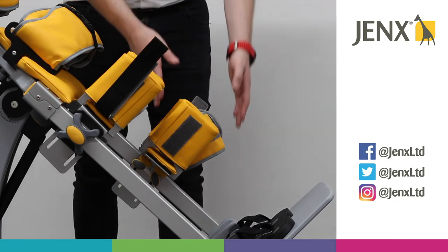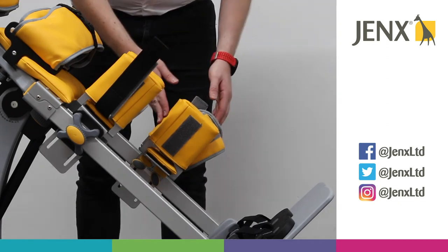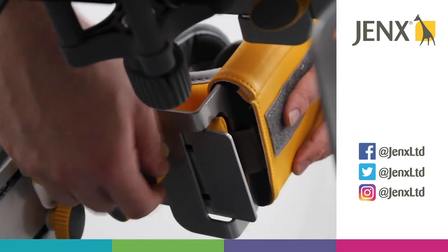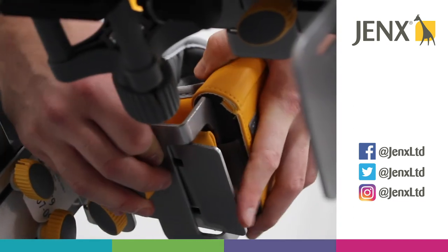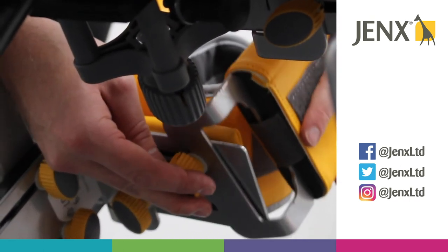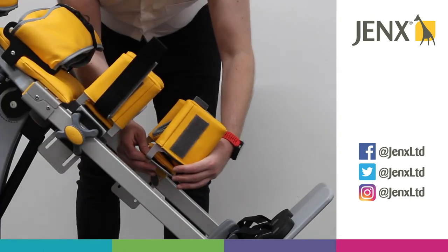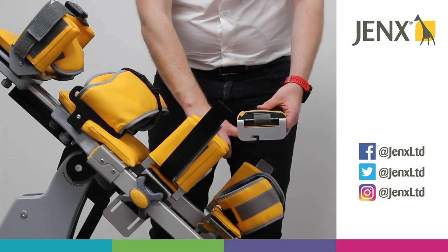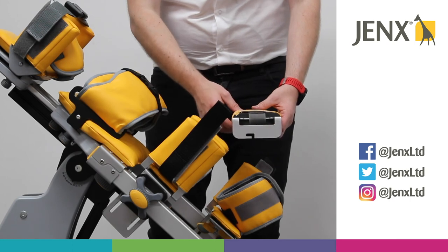We may also need to remove one of the two support pads. To do that, we just loosen the wing knob right off and we're able to remove the support pad. As you can see, we have a lug here that the wing knob will attach to.